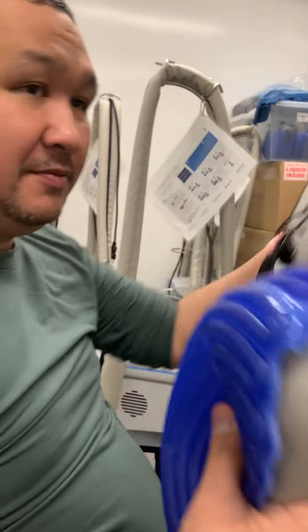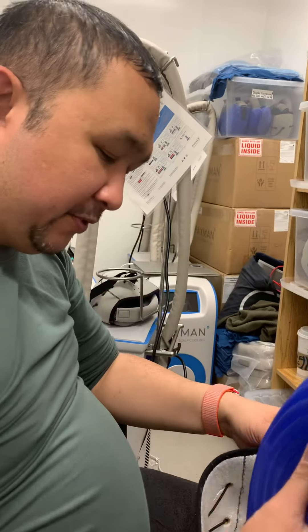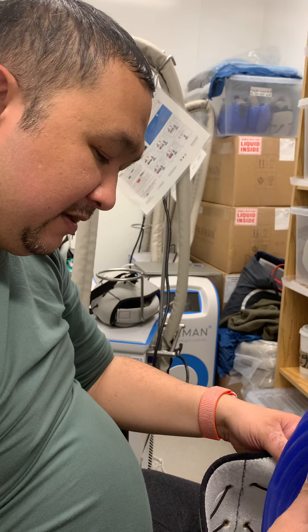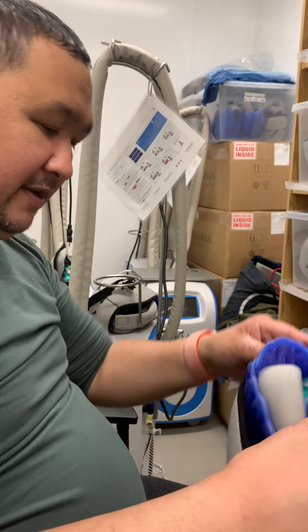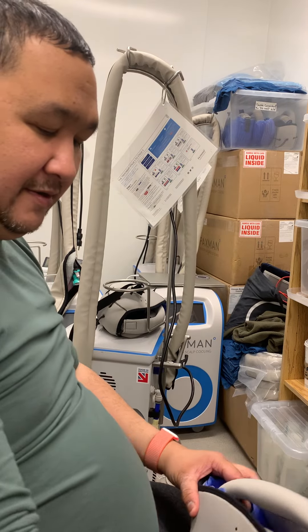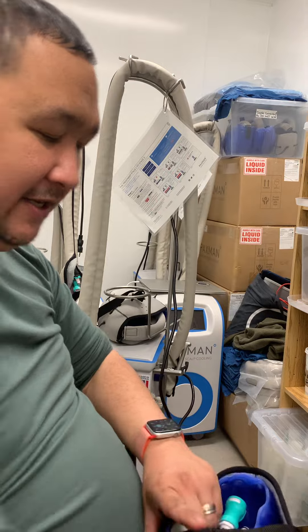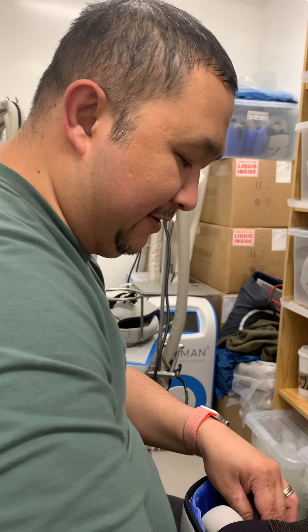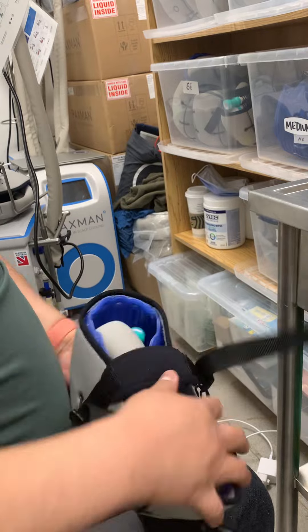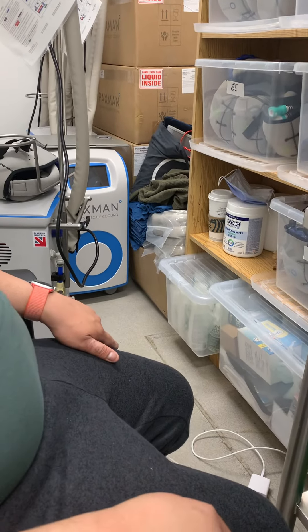So this is clean. You put the velcro in, make sure that it's aligned, and then use the chin straps to tighten and lock it in. That's it — perfect. Then you should put it somewhere safe, not right now.